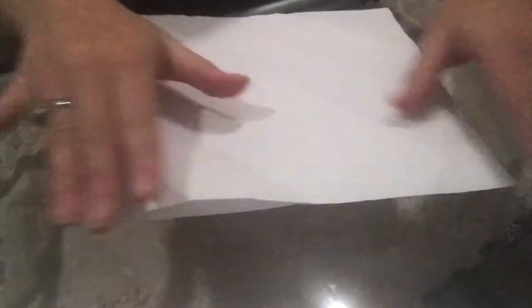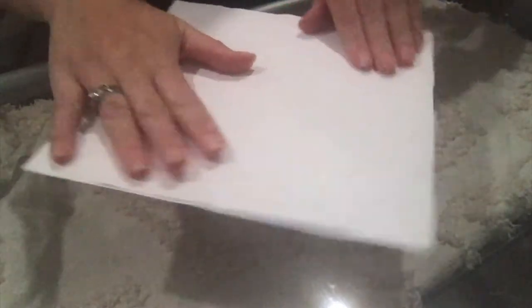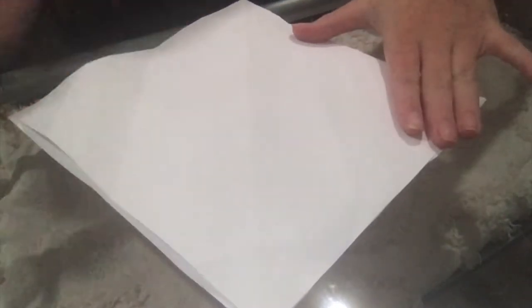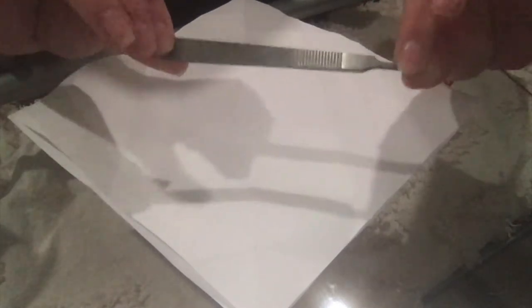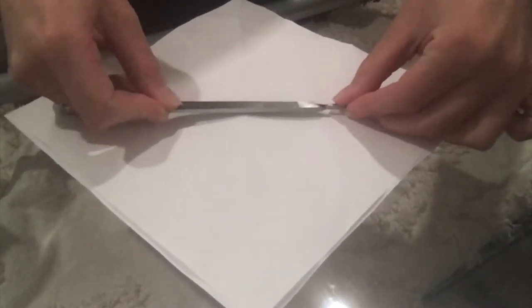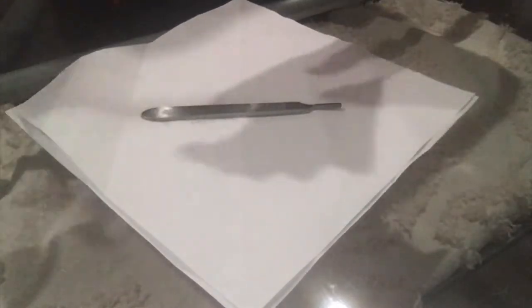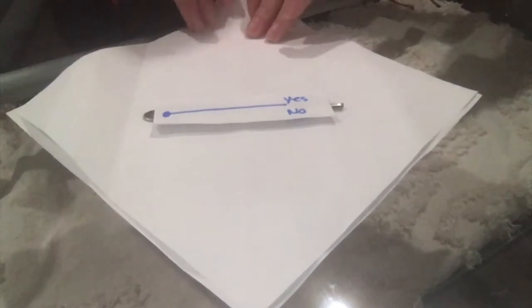This is a simple procedure and I will be teaching it to you now. For starters, you're going to want your two sheets aligned with one of the corners facing you. Get the tool that you want to be sterilized — I'm going to use one from a practice kit — and place it in the middle. Then put the indicator strip on top of it.